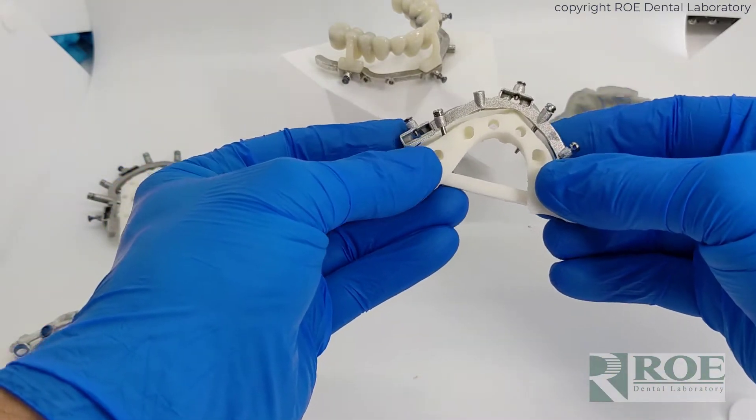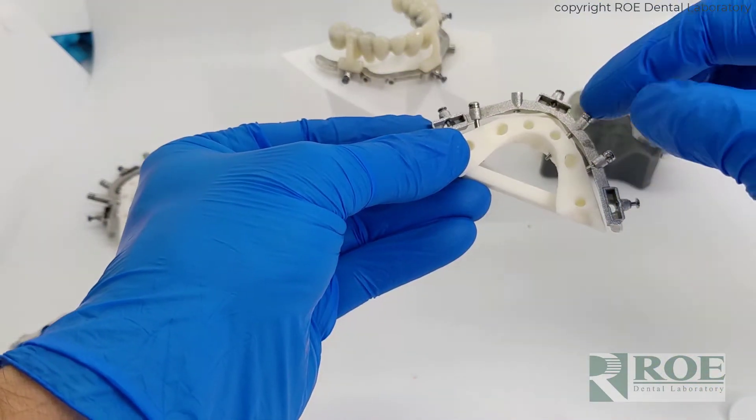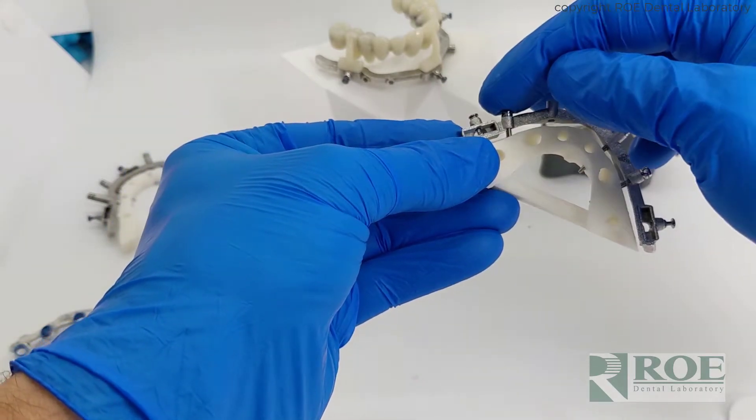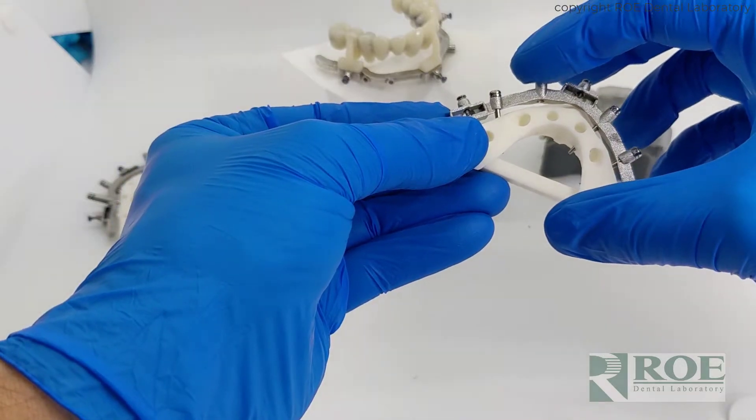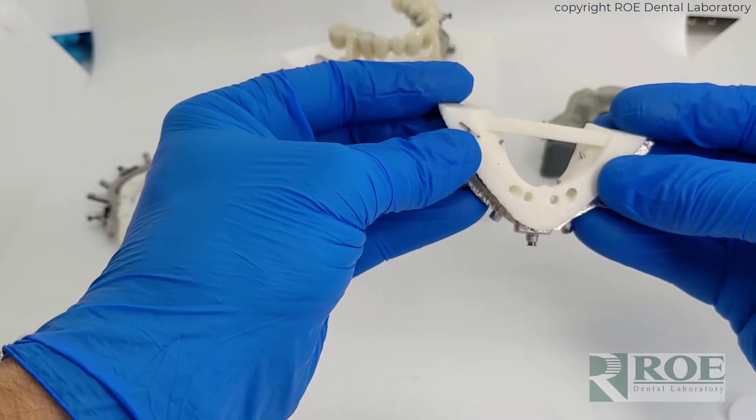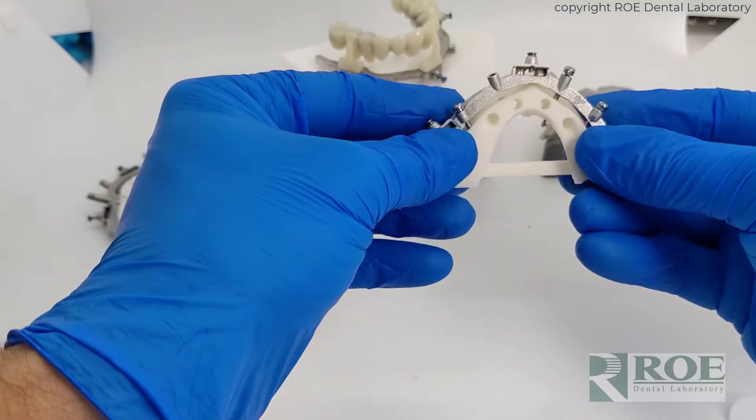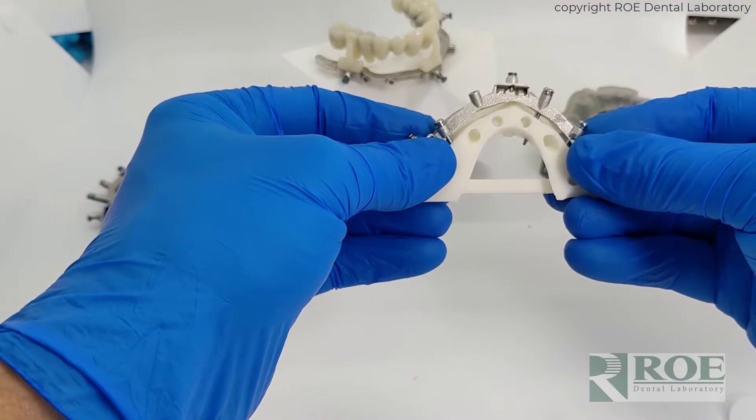It is also not contacting the bone. So this is floating. It is just dependent on pin trajectory. And we designed step-down drills to coordinate with these pins. They are transcortical. You can see I'm poking through the lingual plate and just pin trajectory holds the fixation base in place.